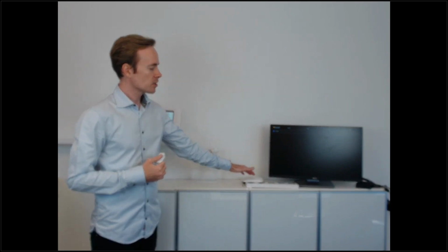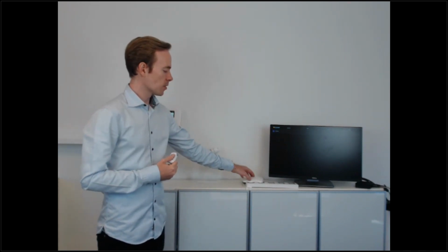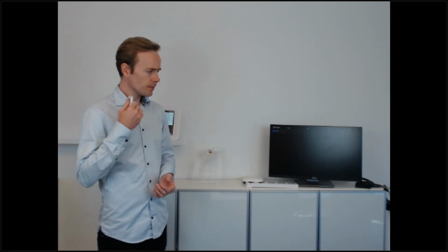For the i3 OSD system, you have to place a few units and run a few cables. The hub goes in the ceiling in the lab. The other units normally go in the technical room. And there are possibilities to connect the video unit to your main monitor that comes with the X-ray system, depending on which brand you have on the X-ray system.